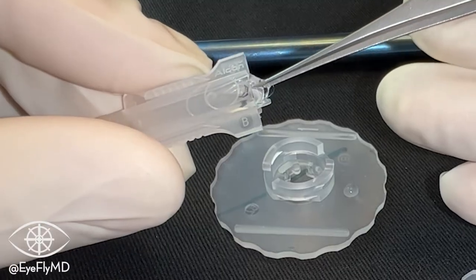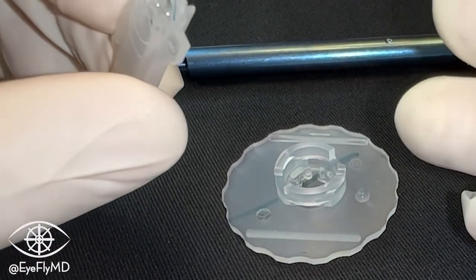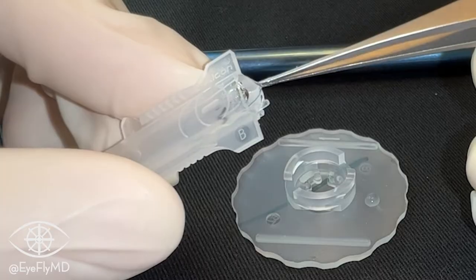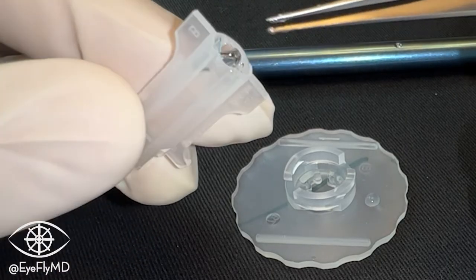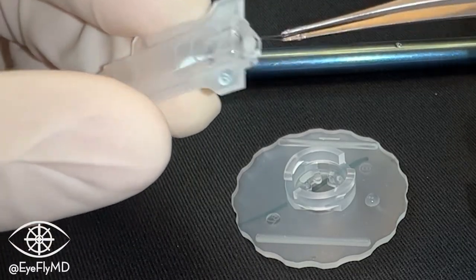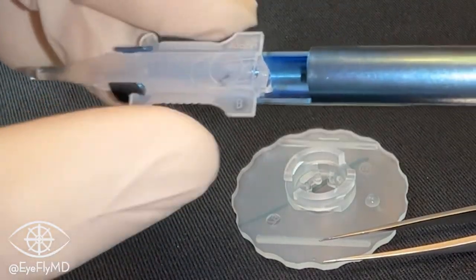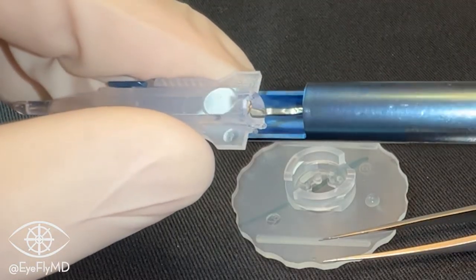As we put the IOL on, we can see there's a little peg or post at the back of the B cartridge for these three-piece IOLs — see it highlighted here. The reason we have this is to tuck that trailing haptic over that peg. We're being very careful because this is all usually very fragile PMMA that's very susceptible to bending or breaking, and we tuck that trailing haptic over the peg so that when we snap into place — hear and feel the snap — and start advancing the plunger.